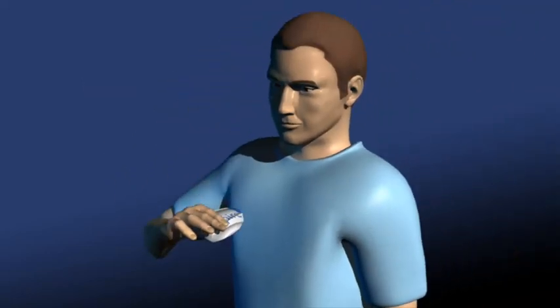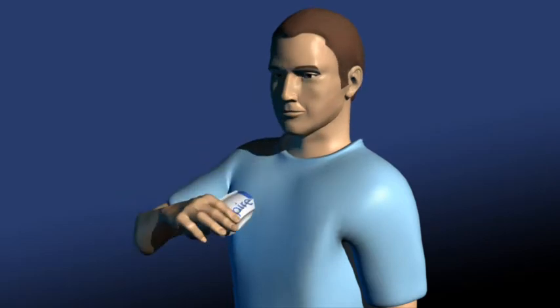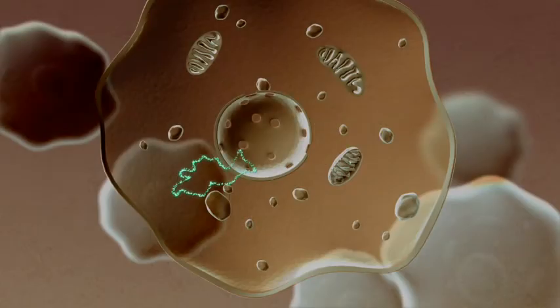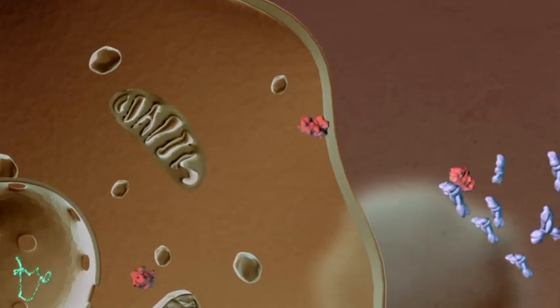We have sought to re-engineer vaccine administration with our RISP-Bio nebulizer for plasmid DNA vaccine delivery. A DNA-based vaccine can be produced in as little as two weeks, a critically important improvement in the face of a pandemic.